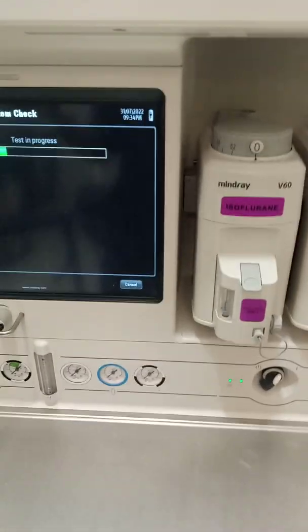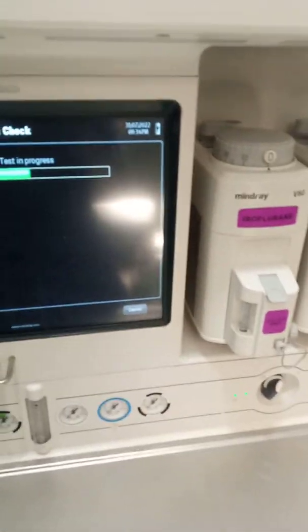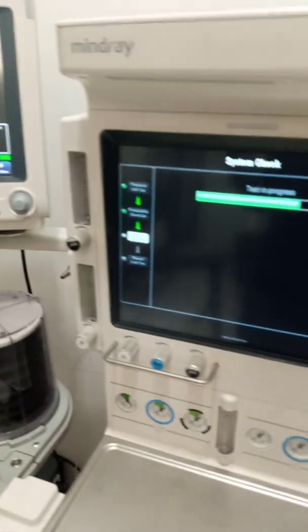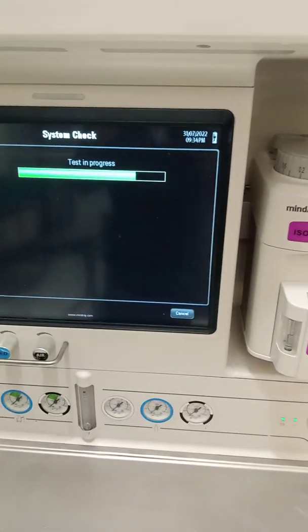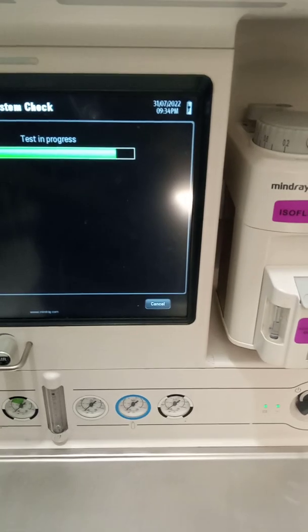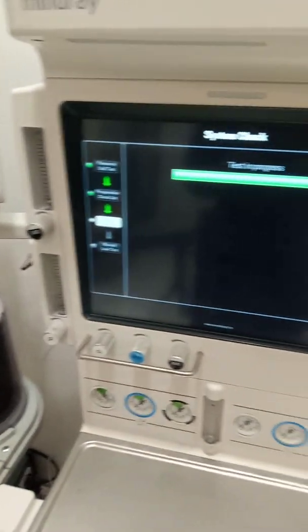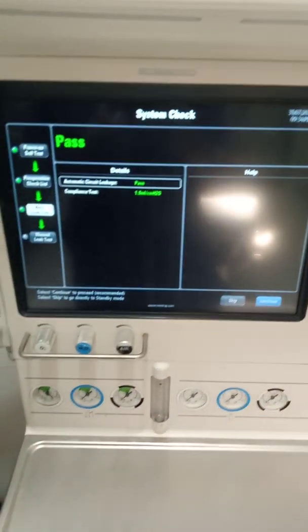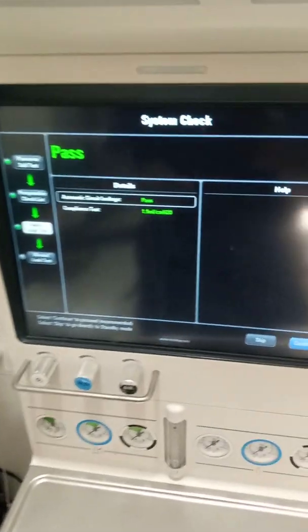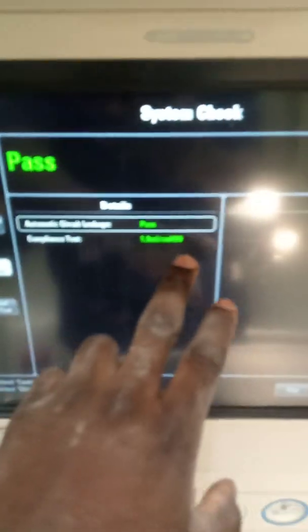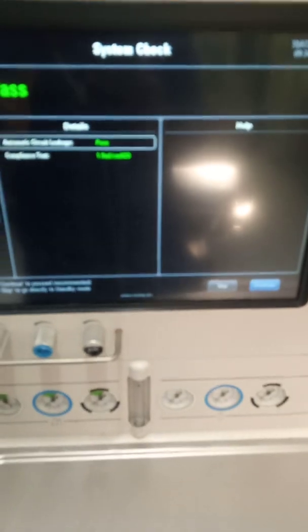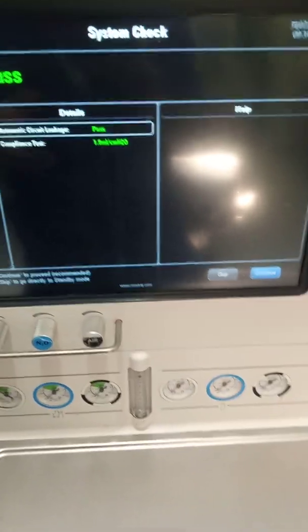It's very simple and everybody should be able to do this, and it's very necessary for it to be done before every case. We are going to learn why it is important to do that. Automatic circuit leakage — we've actually passed, so we are on course. We are going to continue with our calibration.